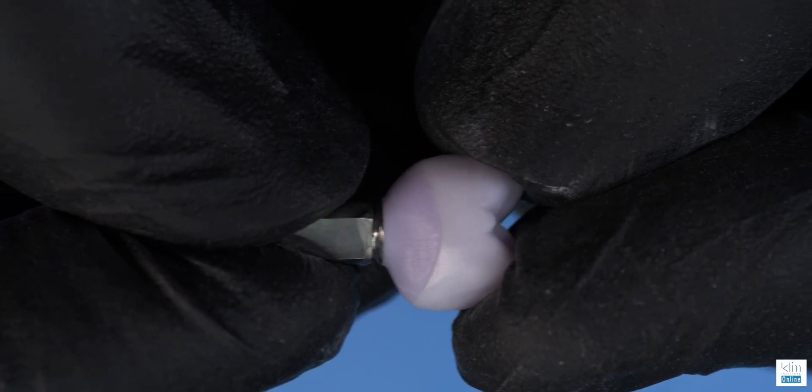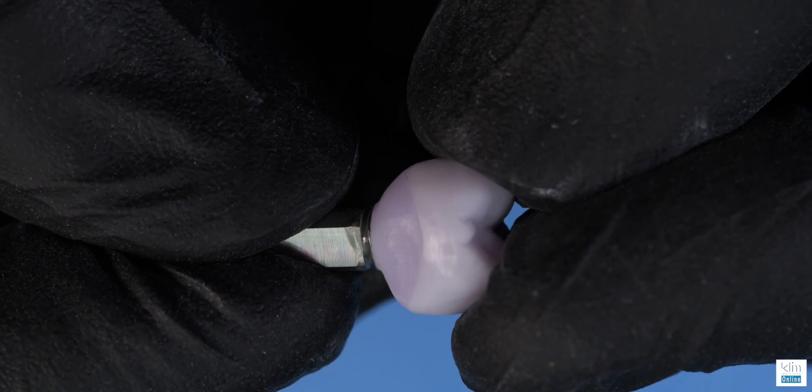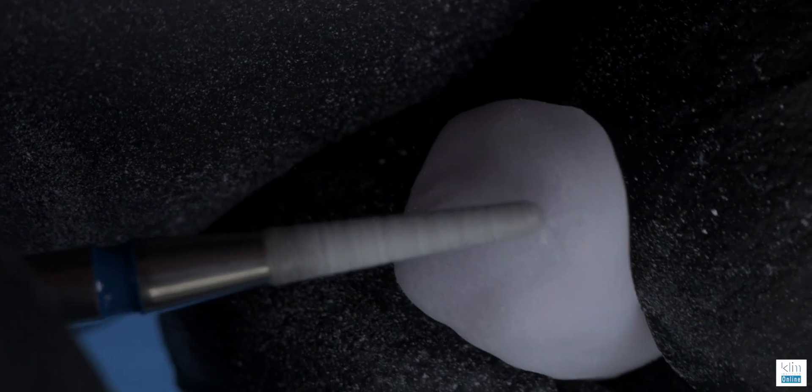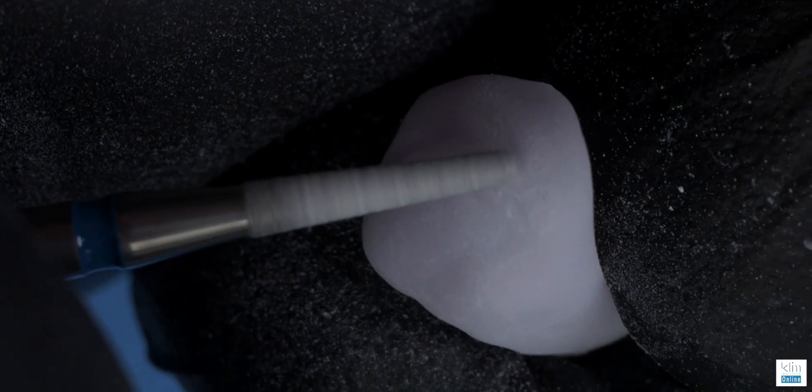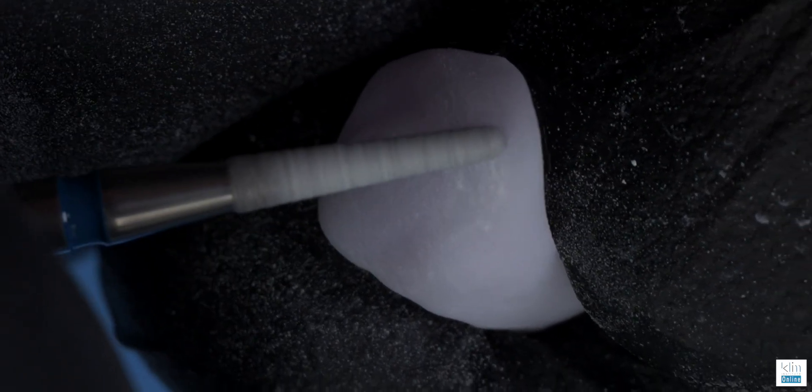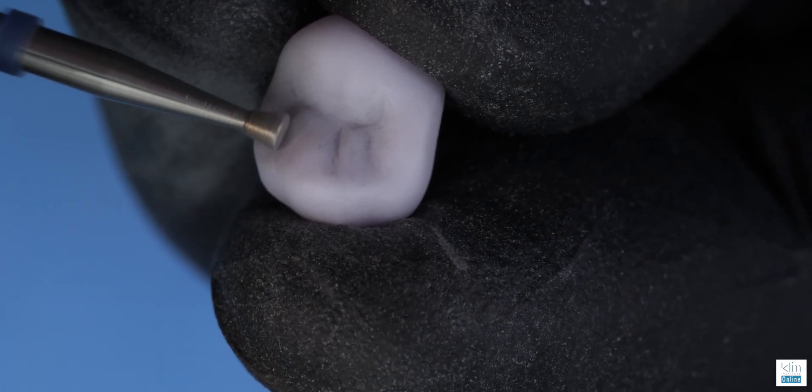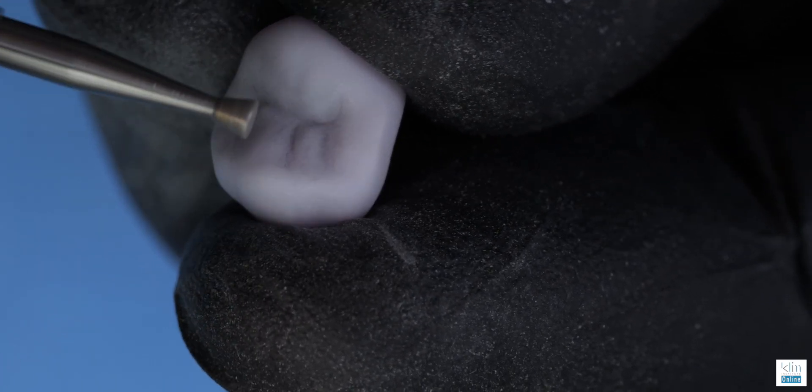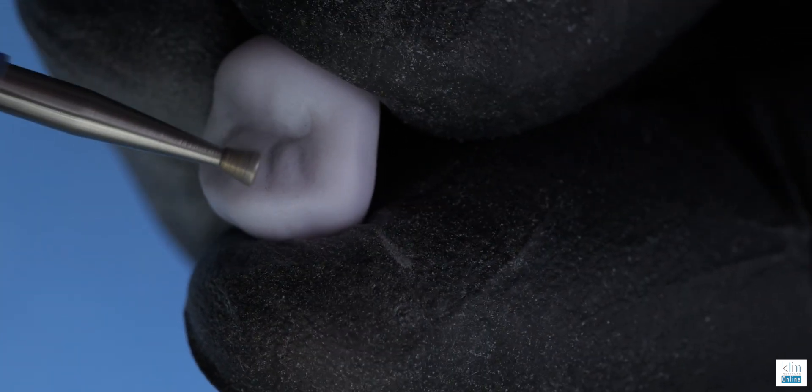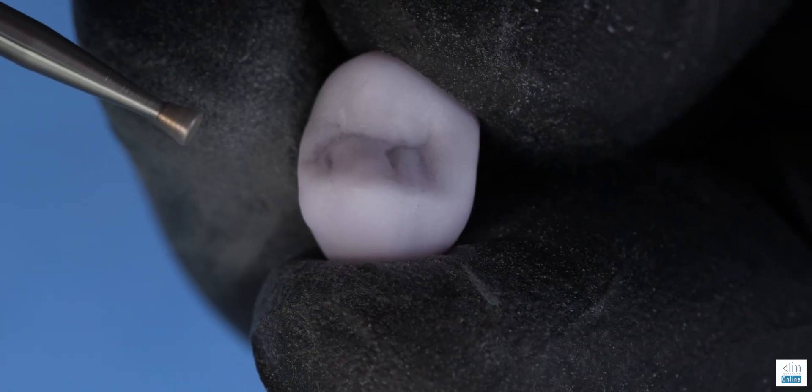This video could also be the workflow for finishing a posterior restoration. This is actually a premolar implant restoration, but the techniques are the same, whether it's an implant or a single restoration that fits onto the abutment or restoration that fits onto a tooth. The workflow is the same.